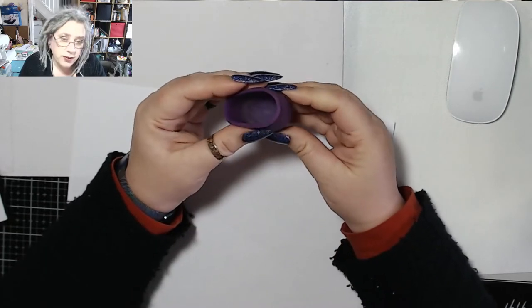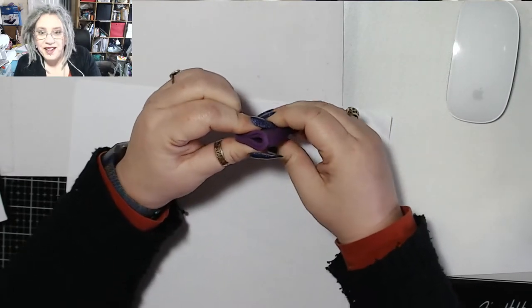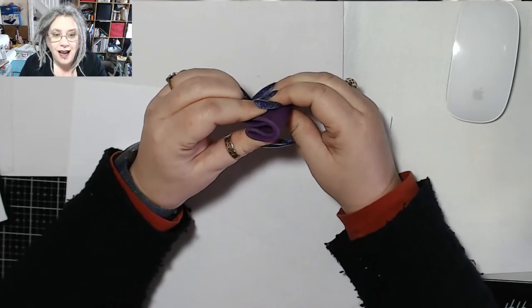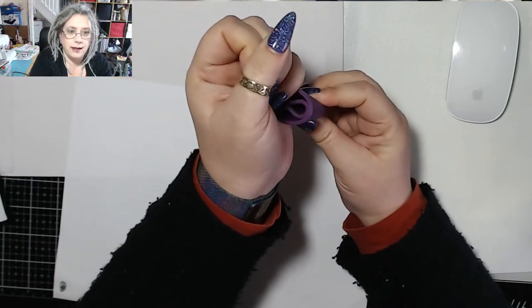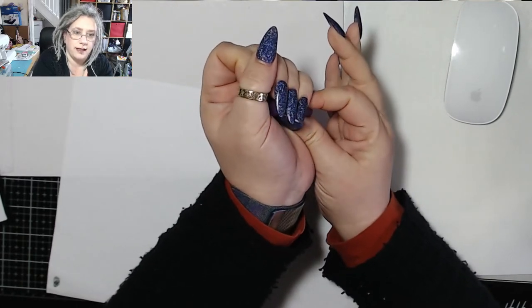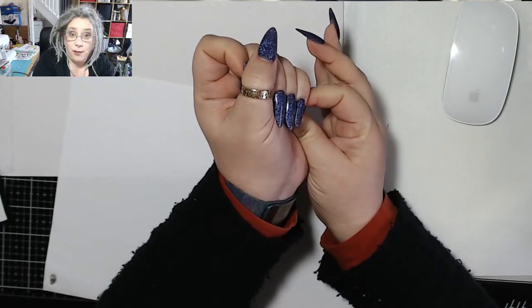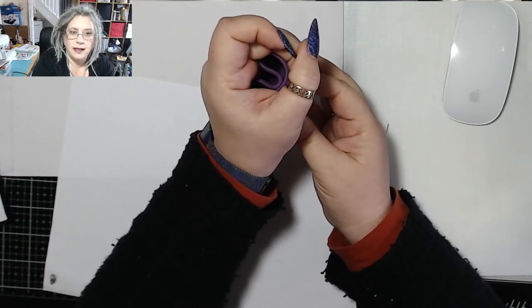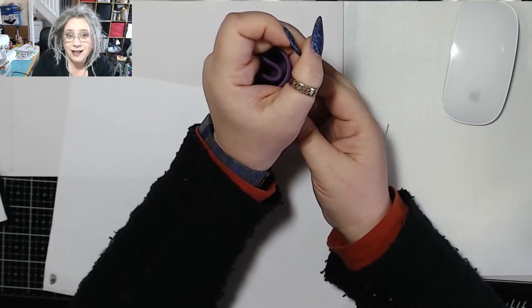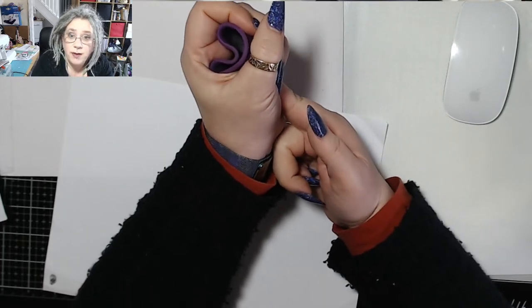So how do I do it with just one finger? First off, I fold it, put my leg up. If you imagine this is my vaginal canal, it goes in as far as I can with two fingers. Nine times out of ten it pops when I let go here because your vagina accommodates it. Then what I do is I get one finger and I push until it's gone past my pubic bone.